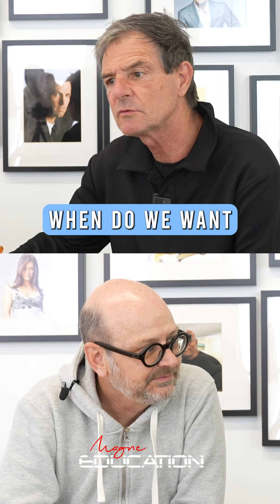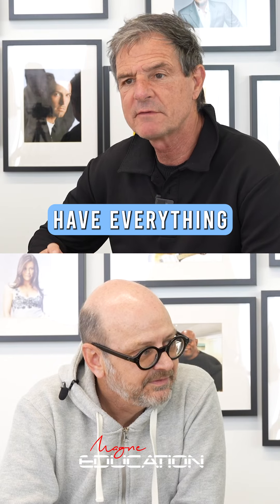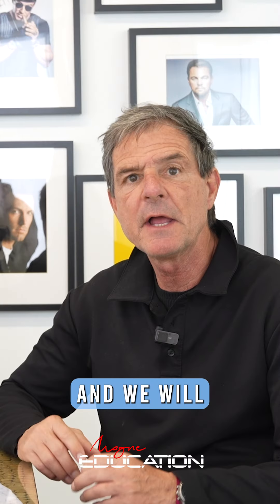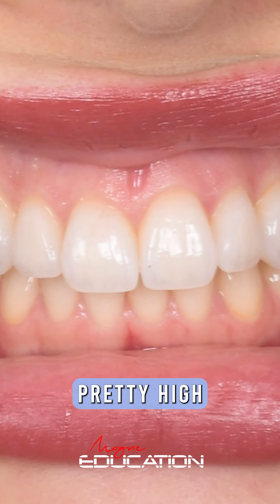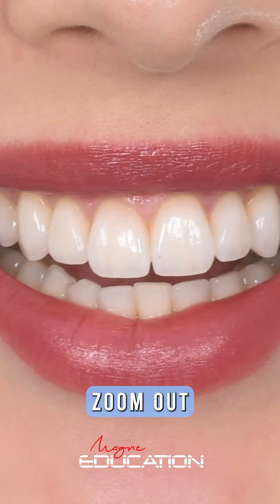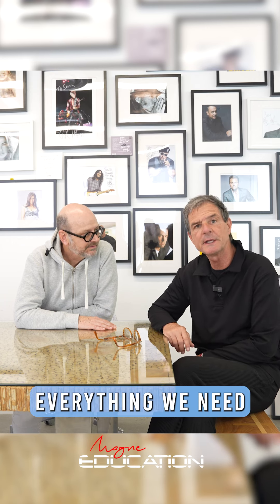Yes, absolutely. When we want to do this kind of design, we want to work in very high definition because we want to have everything in the face of the patient — the teeth, the lips, and all the face. And we will zoom in to work on the smile at pretty high definition. We will work and after that, we will have our work zoom out and integrate in the face of the patient. So we have in one image everything we need to make this.